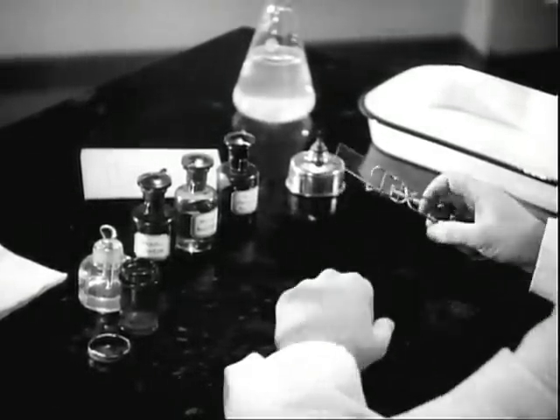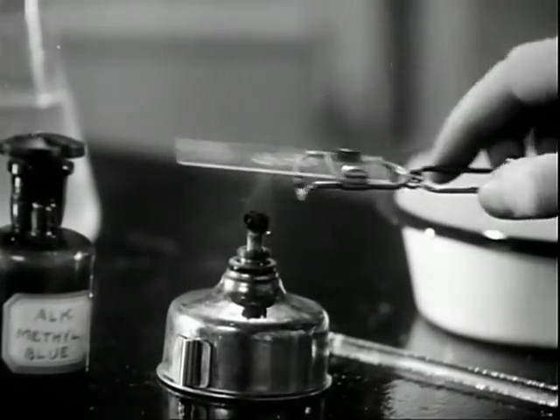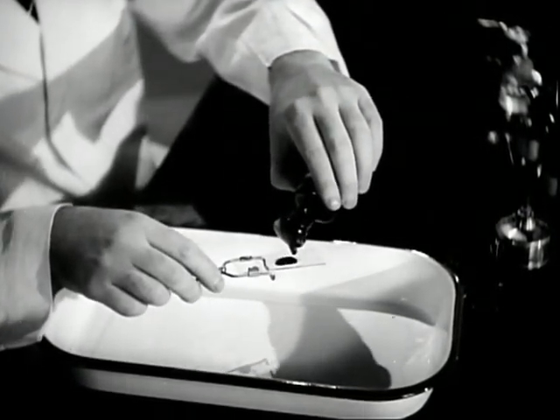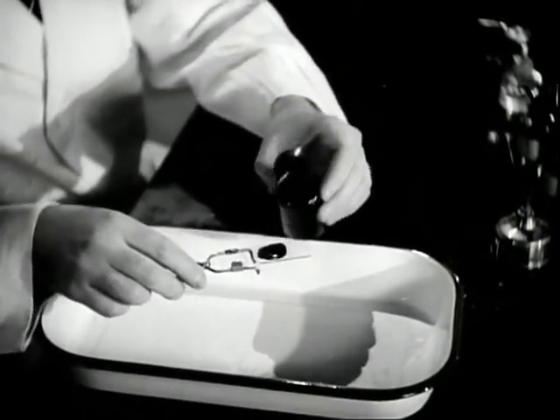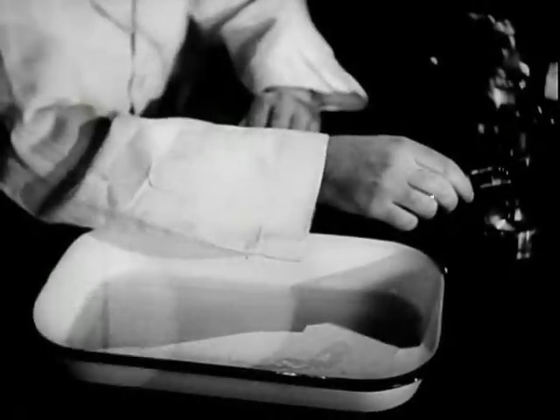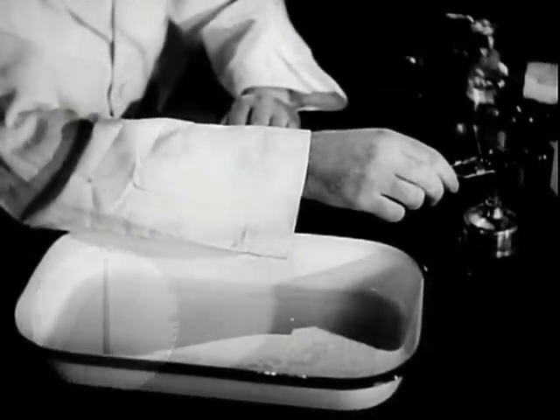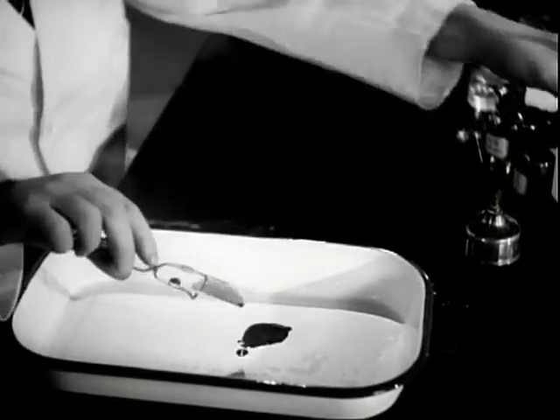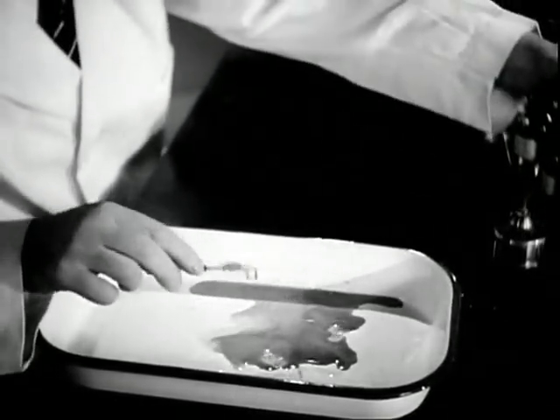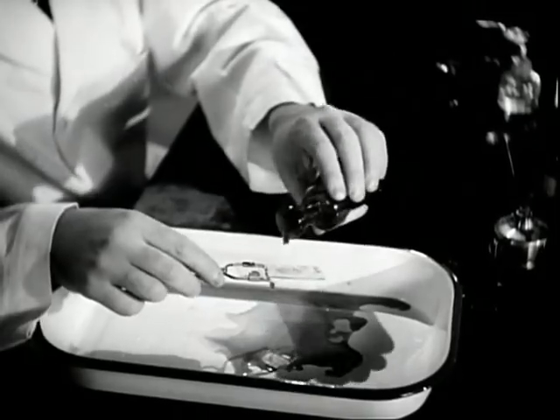After the smear has dried, it is fixed in the flame. The smear must not be burned. The slide is flooded with carbolfuchsin and heated to steaming but not to boiling. This heating must be continued for three or four minutes. The stain is then poured off and the slide rinsed with water.